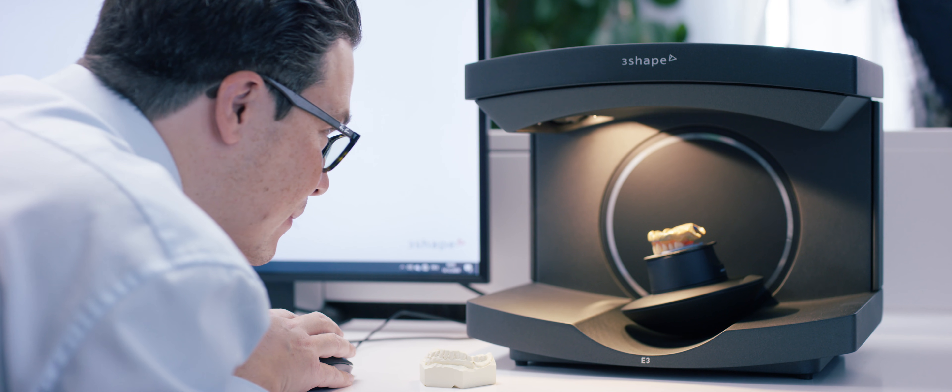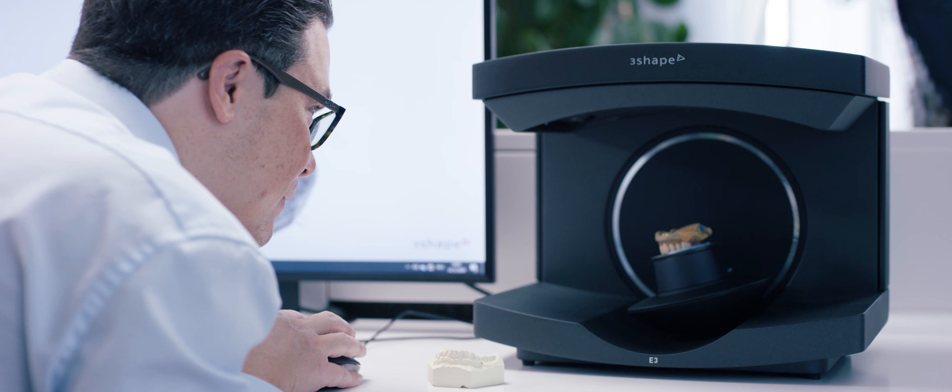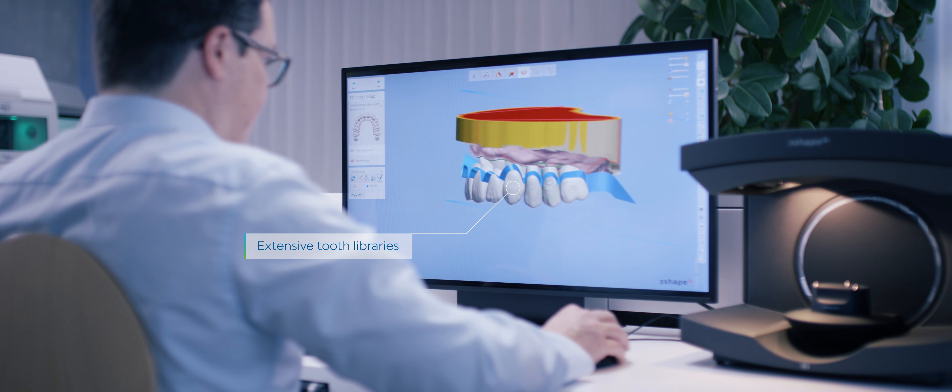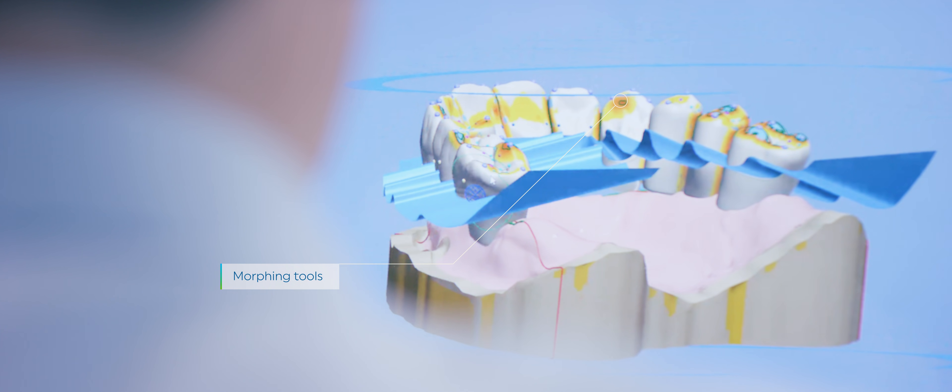The intuitive design software in the three-shape dental system allows the denture to be individually designed and customized with high accuracy, with the help of our unique shell geometry which determines the perfect alignment of the dentition to the gingival margins.